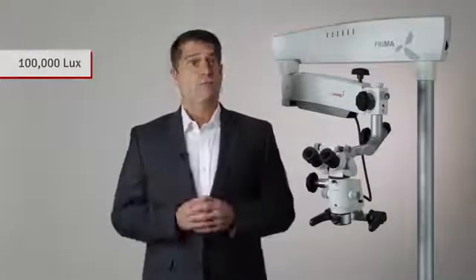One of the most critical measures of a quality microscope is how bright the system is. The Prima is equipped with an LED that provides over a hundred thousand lux, previously only seen through xenon light sources. Lux is the standard measure of light intensity.